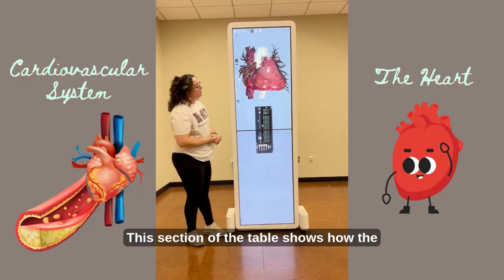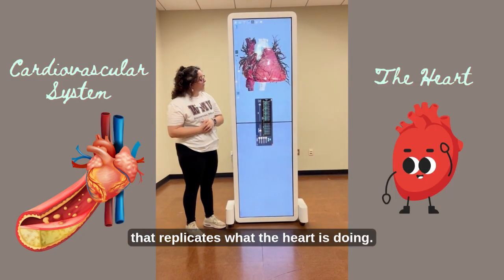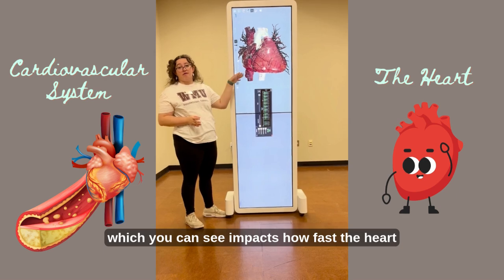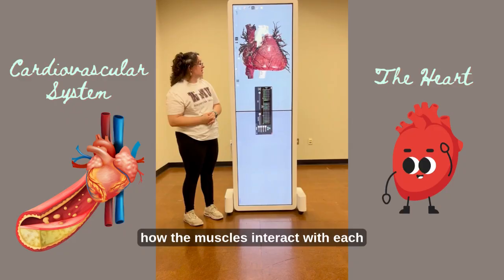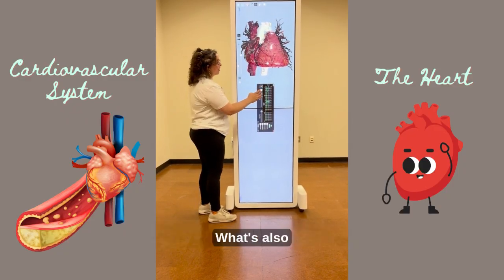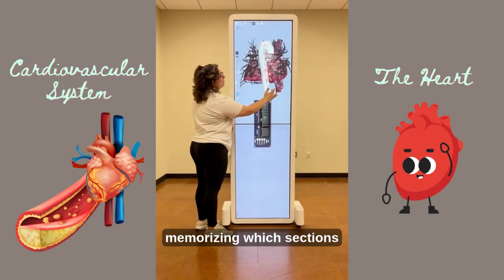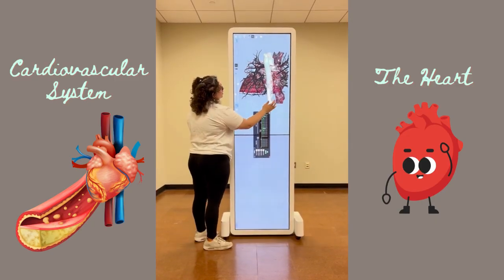Another tab I want to discuss is the cardiology tab. This section of the table shows how the heart beats, and you can see right here the EKG that replicates what the heart is doing. So I just increased the heart rate, which you can see impacts how fast the heart beats. And I also decreased it so you can see how the muscles interact with each other when the heart is beating. What's also really nice about this tab is that you can go ahead and highlight what muscles are being used in the heart, which is really helpful for our students who are memorizing which sections of the heart are located and how they interact with each other.